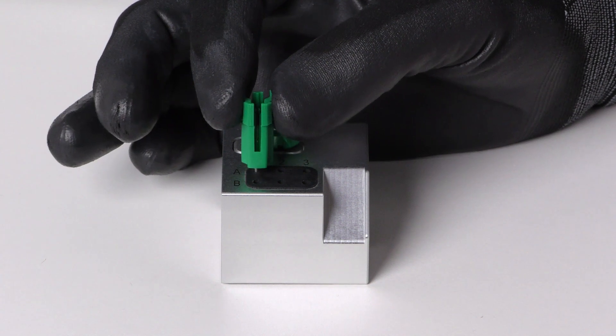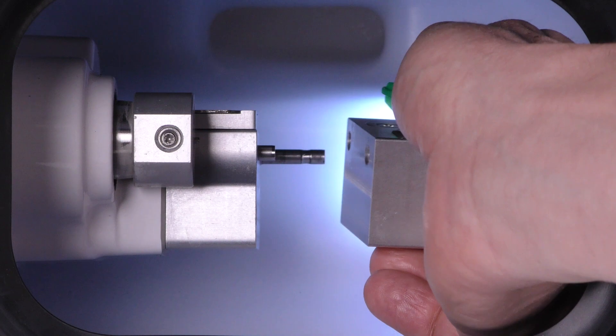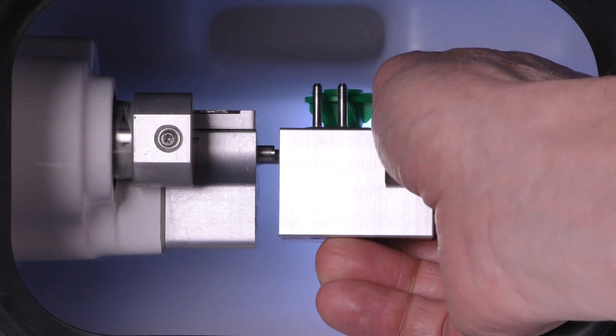Dental CNC offers even more options for tools. For further details on tool management in Dental CNC, see our video. Plug the tool magazine onto the tool magazine holder in the working chamber.